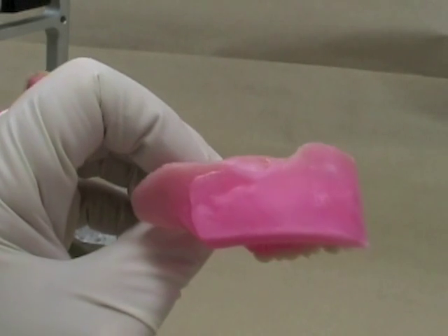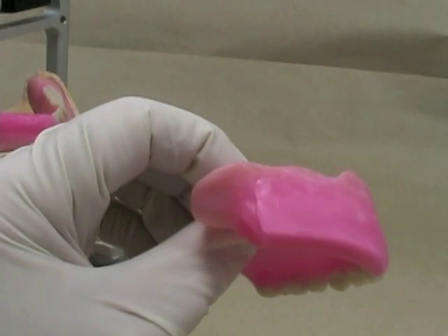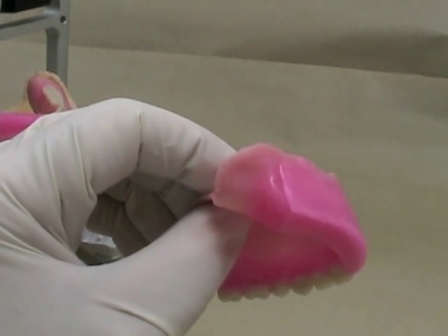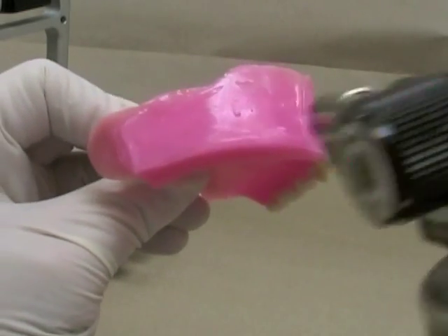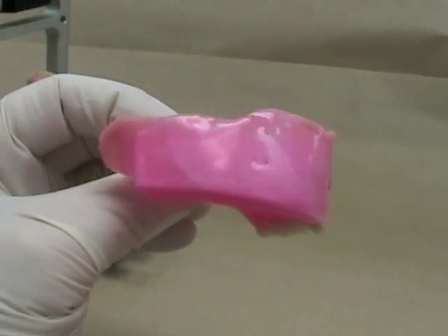This particular rim could be angled a little bit more out — a little bit more proclined. In the area here where I've got some seams, make sure that you seal those down, because as you start to cut into the wax, you'll find that those parts come apart. You can also take your torch and just smooth things off and blend it with the rest of the wax.